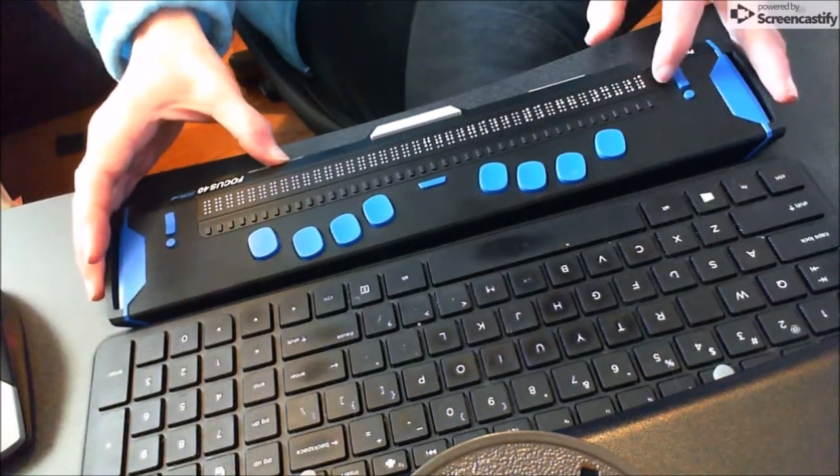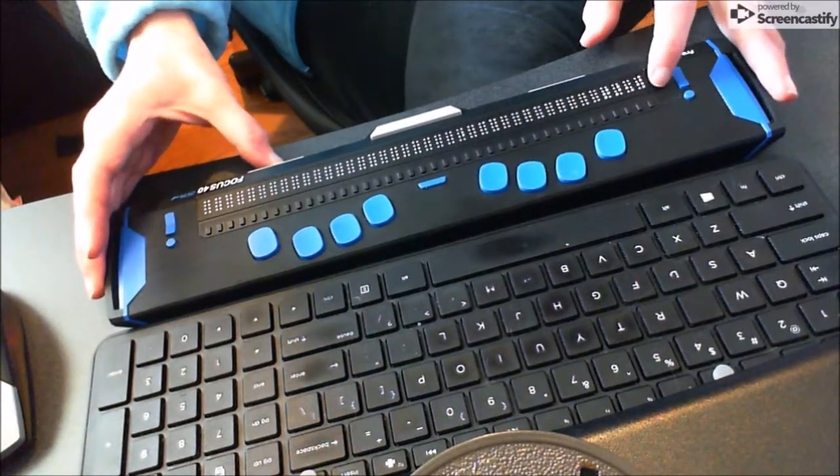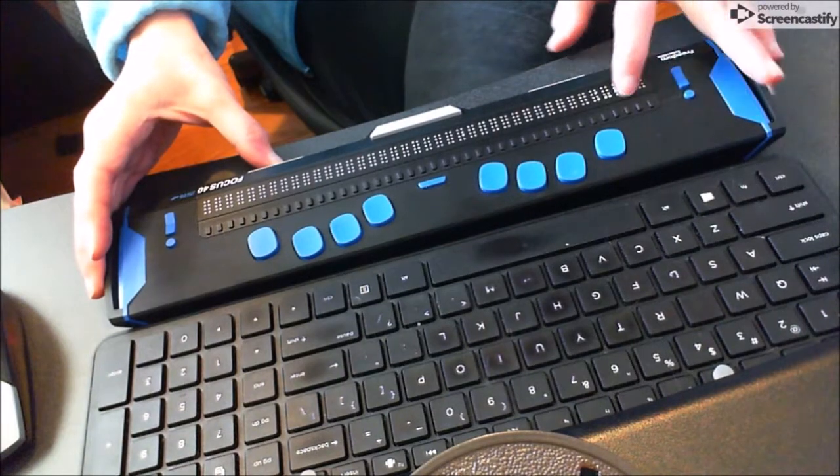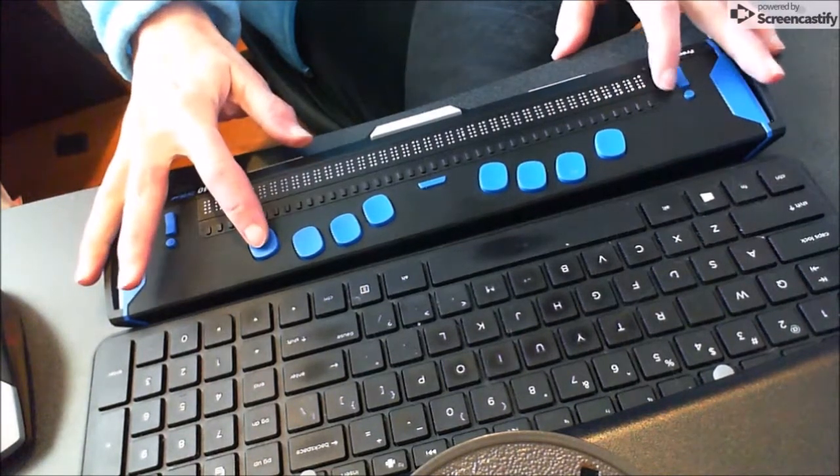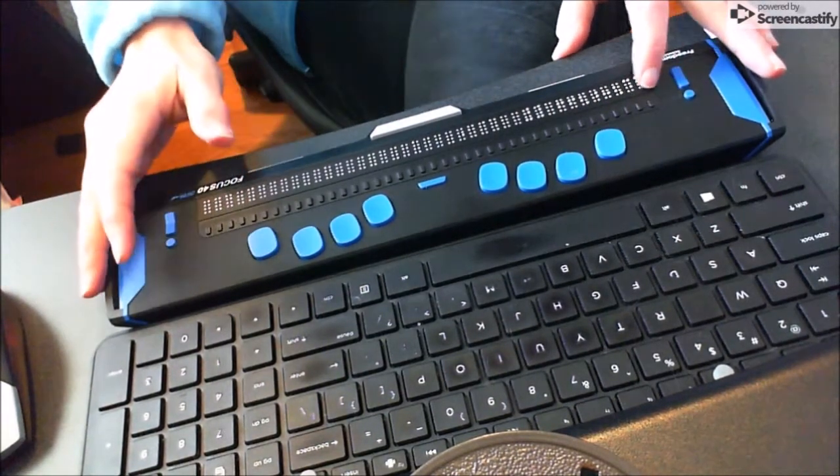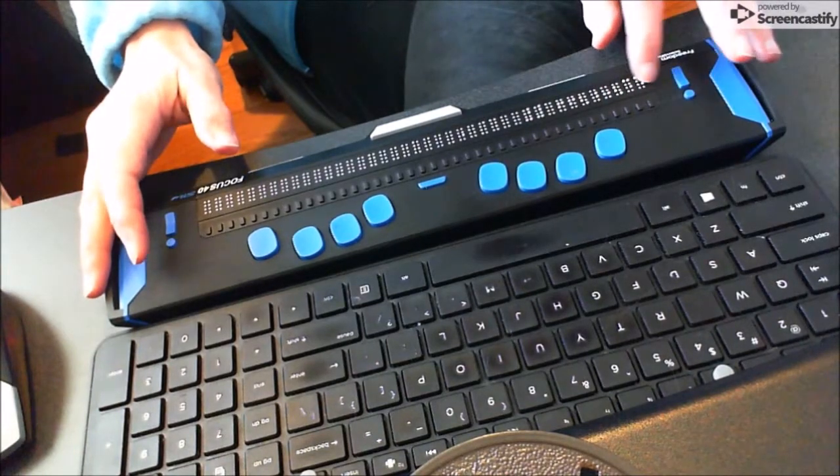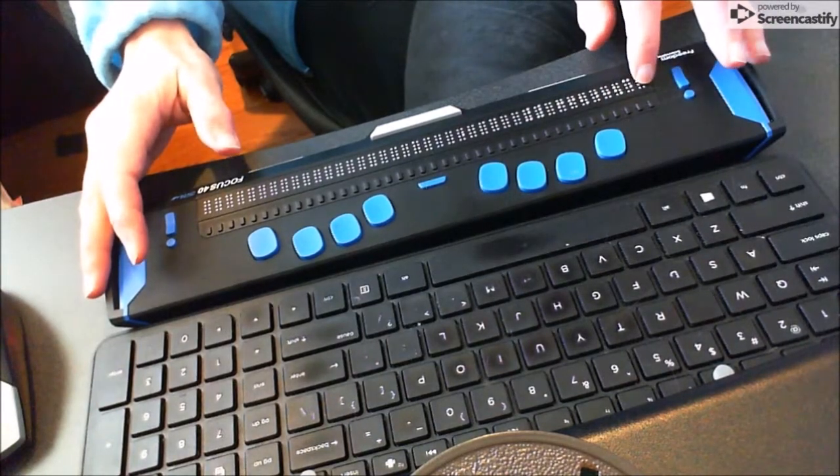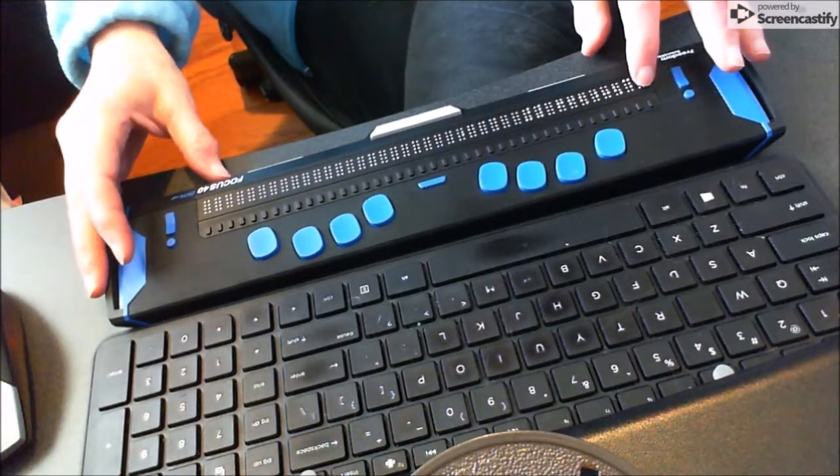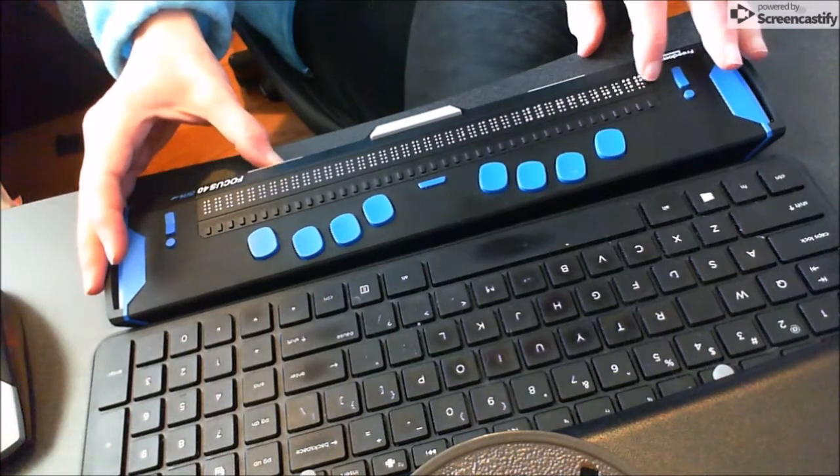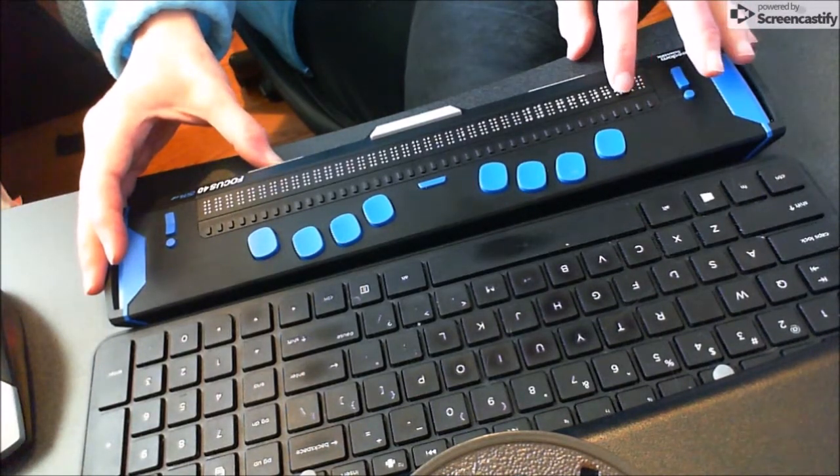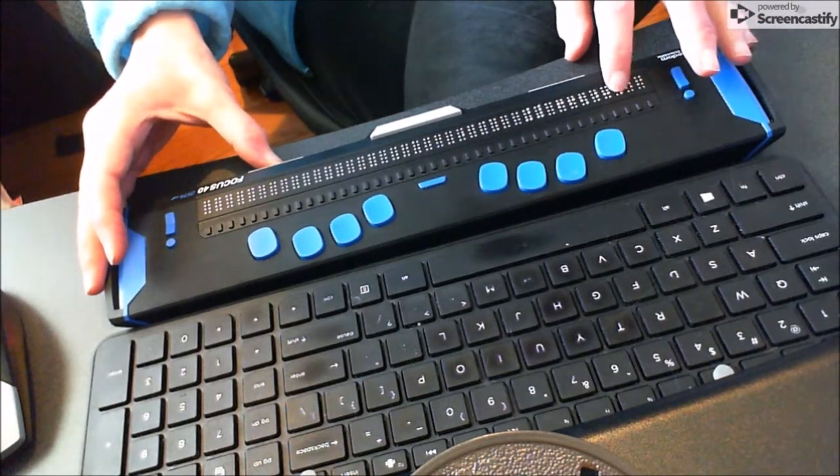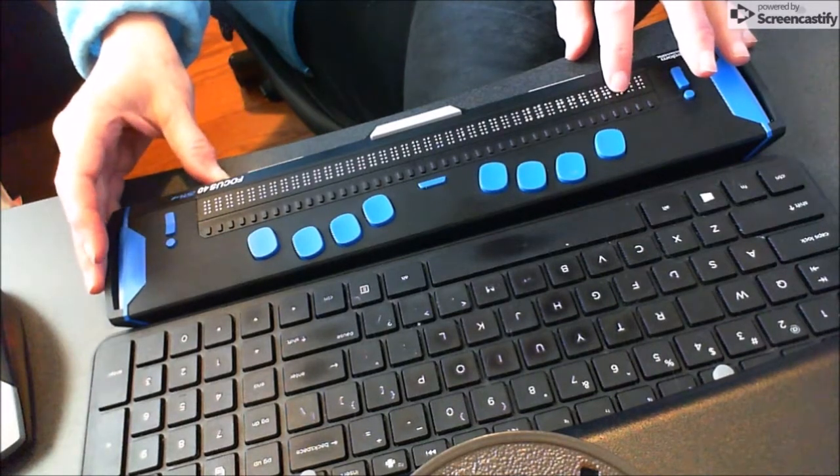Let's quickly go to clock because a lot of people want to know how to do that. I'm going to hit dot 8 to confirm it, and it starts flashing. This is already set up correctly because I've already done it. You can easily press your rocker button to change to what you want. There's your colon.